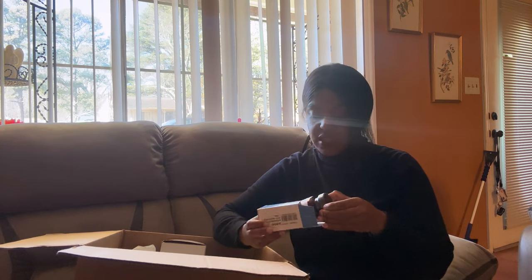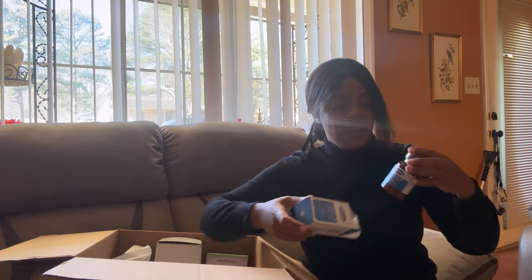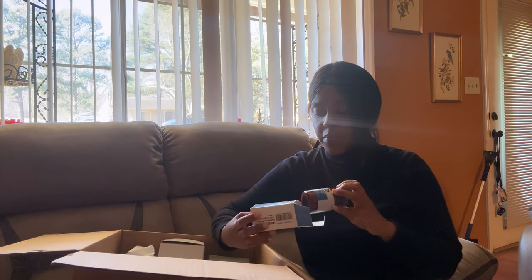This next item I probably won't be using — I'll more than likely end up giving it away. It's an adhesive I've never seen before, but I saw my supplier was offering it so I ordered it. I think it might be a little too strong for my skin, and immediately after ordering it I realized I really don't need it, but I let them send it anyway.